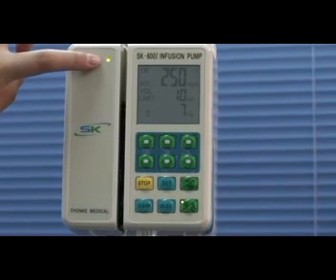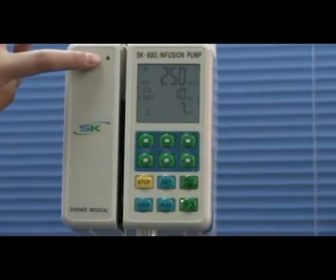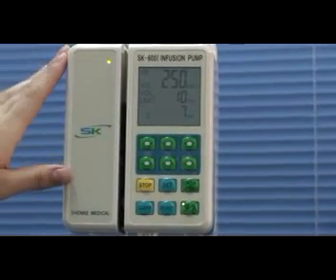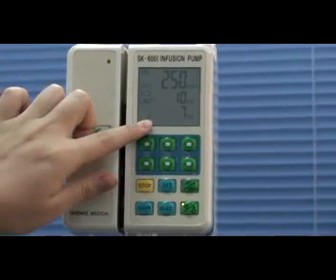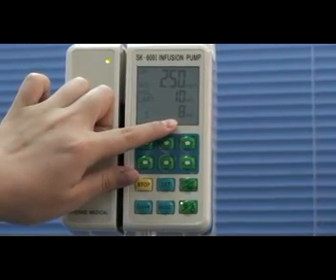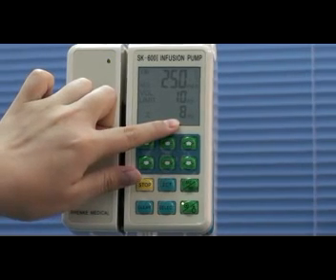You can see the green indicator light is flashing, that means the pump is working. And here you can see the accumulated volume, it is increasing, now it's 8.